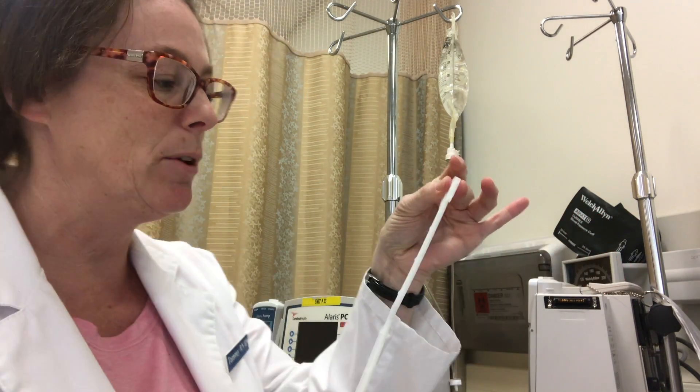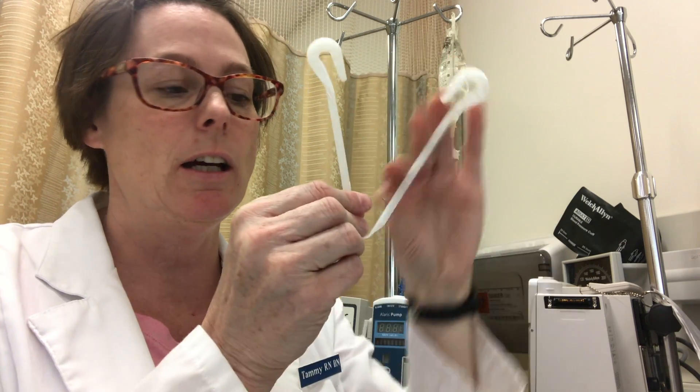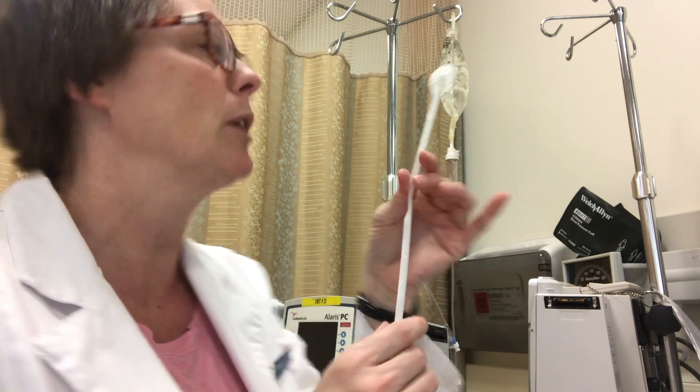Now in your secondary kit you got a hanger. We want to put this on in its extended format, not folded up. I see a lot of times it's hung folded, but that actually is not the policy — we want to have this folded out completely.